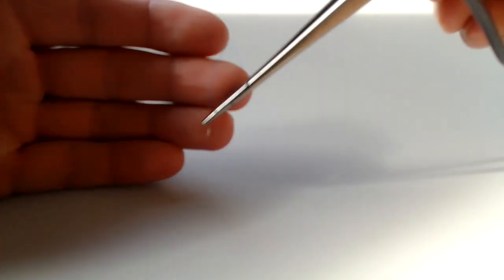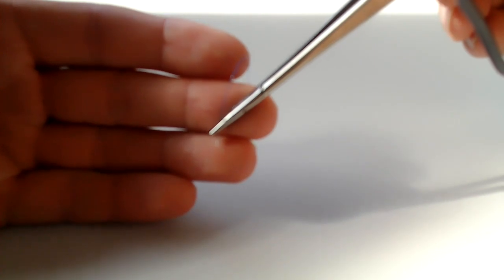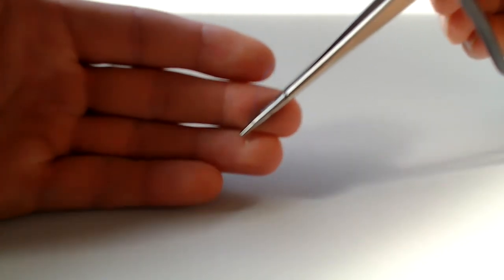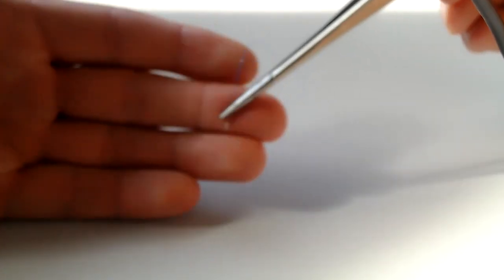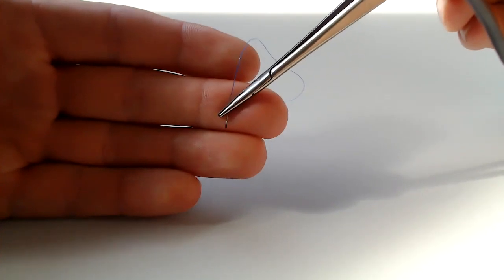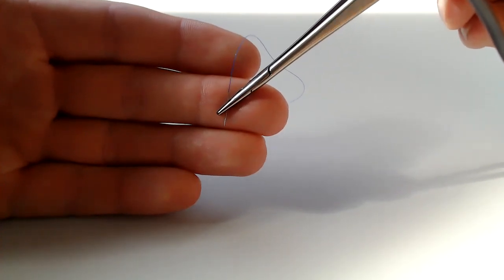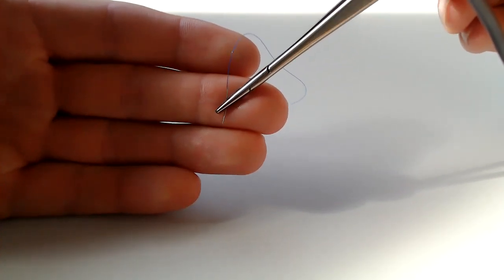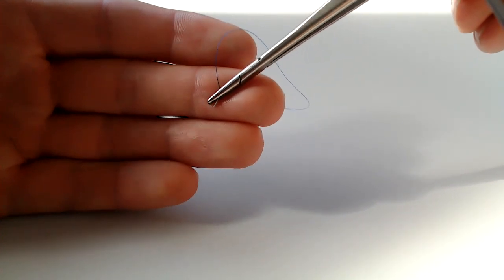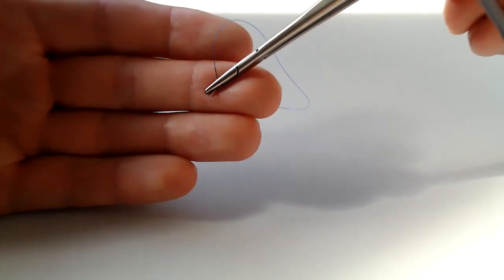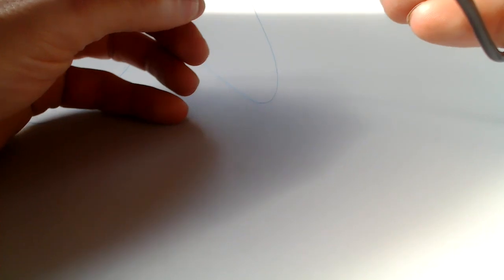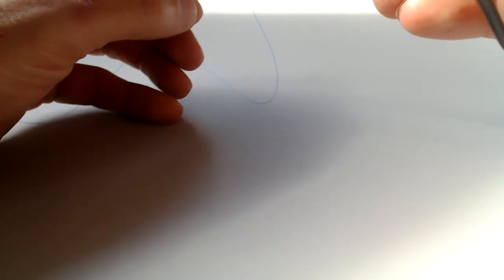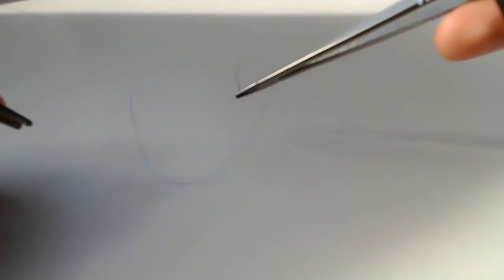Pardon me, I'm using my hands because I'm in my office here. I don't have a good set of pickups, but you can see here that it's kind of loaded up right in the middle of the needle drivers. Never optimal. You're sacrificing precision when you do that. You always want it loaded up in the needle tip.